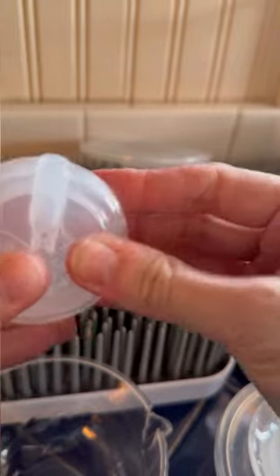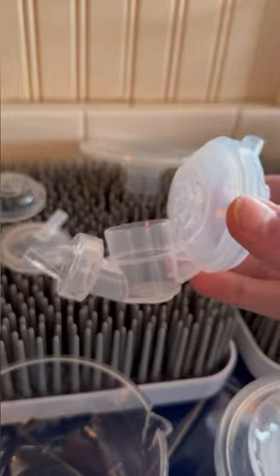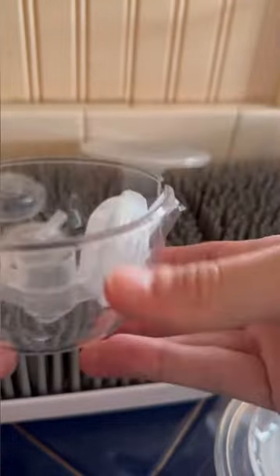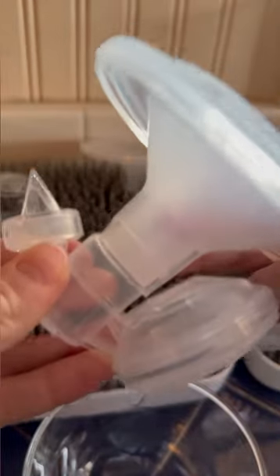This is going to snap in like that. You're going to put this and make sure that the whole part is coming up this direction, then try to put this little part on there just like that. It's going to stick in there just like this with that part coming out of the hole. It's easier if you just take it out and try to fit it in there first before putting it into the plastic cup.